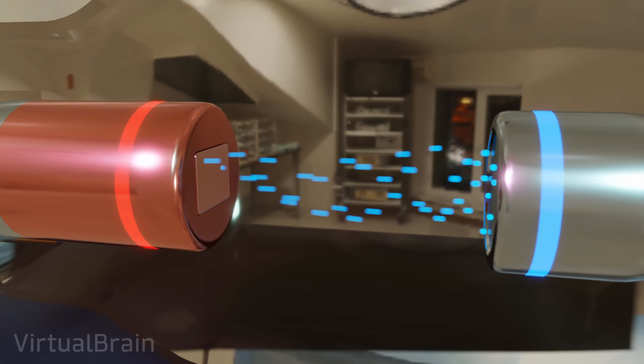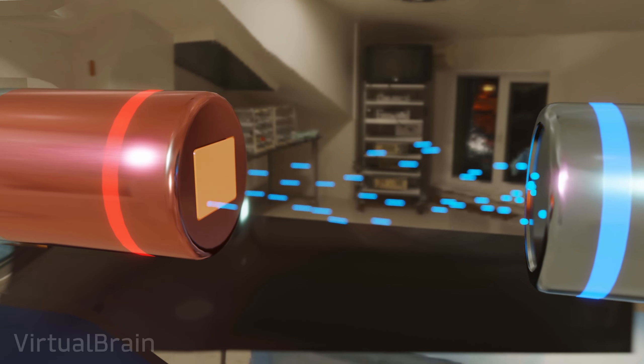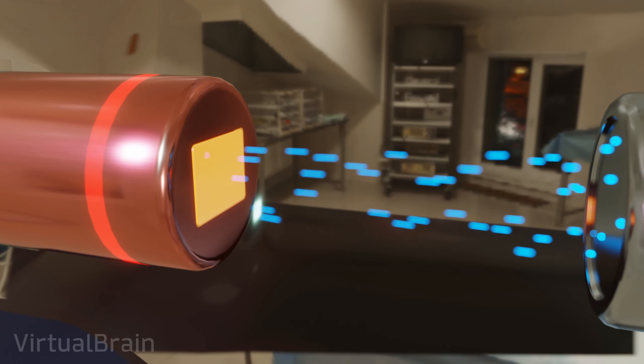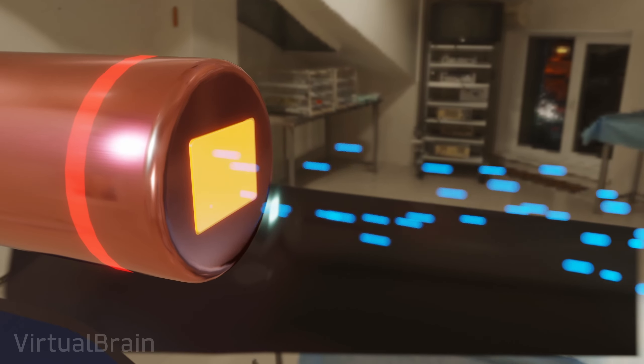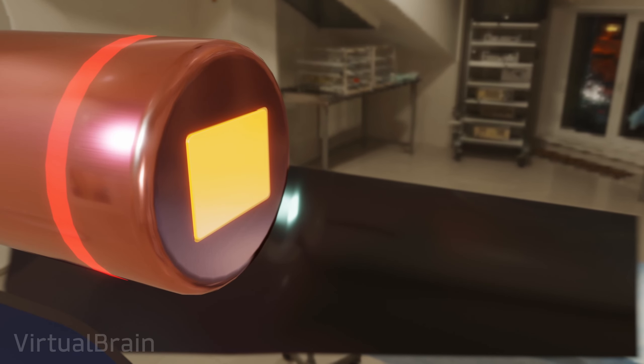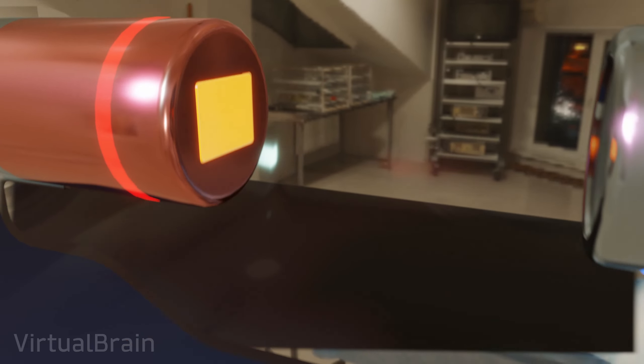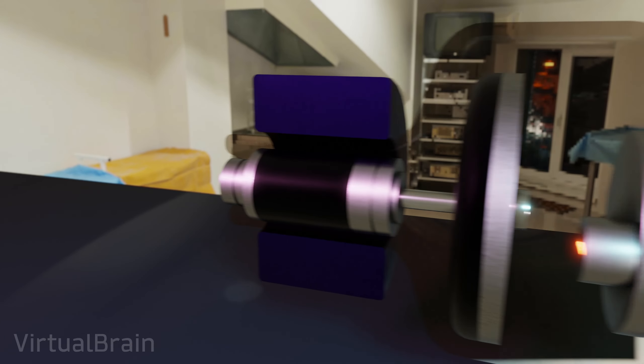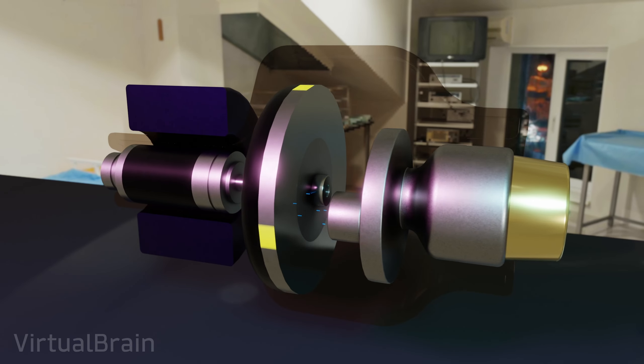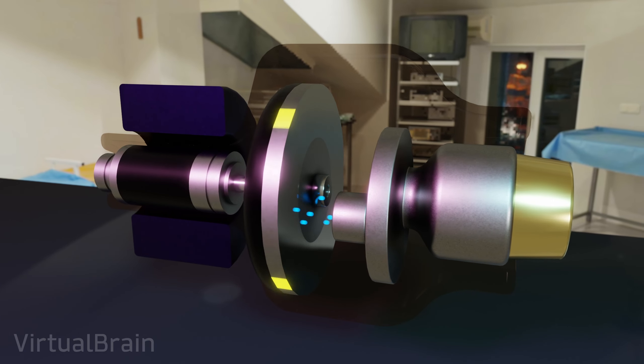Even with all these characteristics, tungsten can still reach problematic temperatures during X-ray generation, especially at high voltages and current intensities. This is why in some cases a rotating target is included so that the area impacted by the electrons is constantly changing, preventing temperatures from rising uncontrollably.